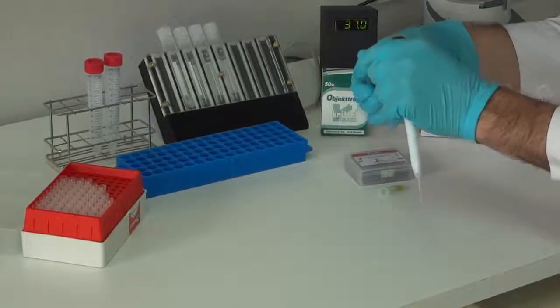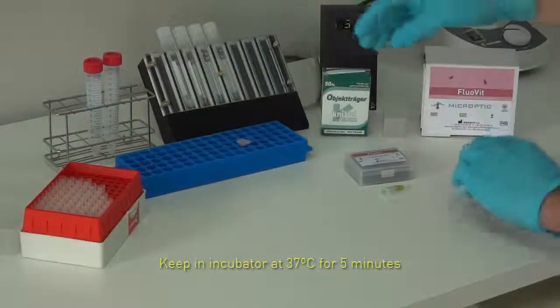Mix slightly and keep in incubator at 37 degrees centigrade for 5 minutes.